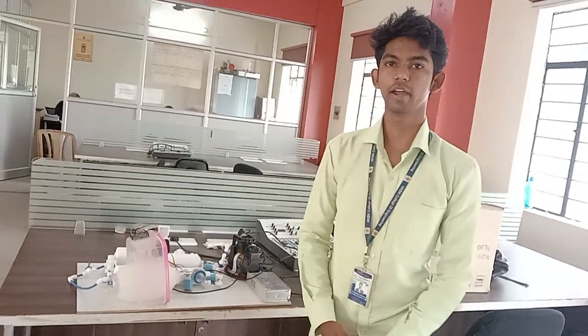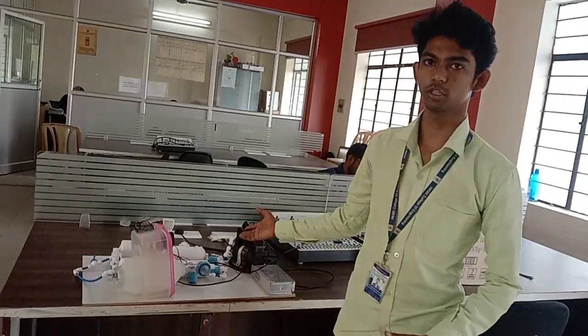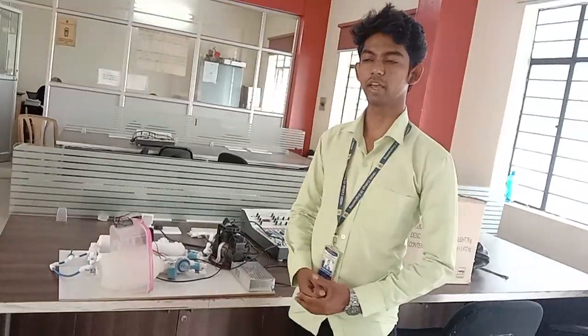Hello everyone, my name is Manu and I will be explaining our project which is adaptive ventilator for enhanced respiration.